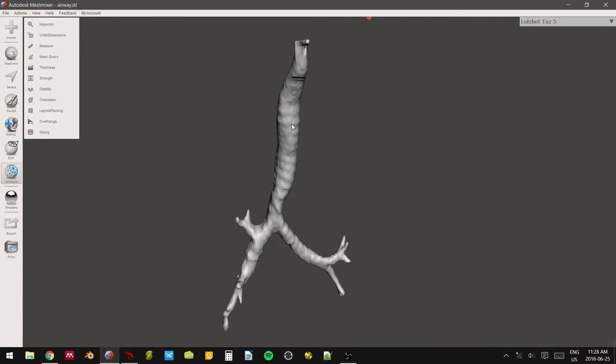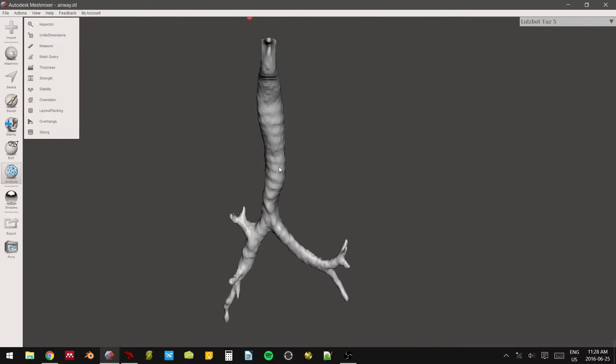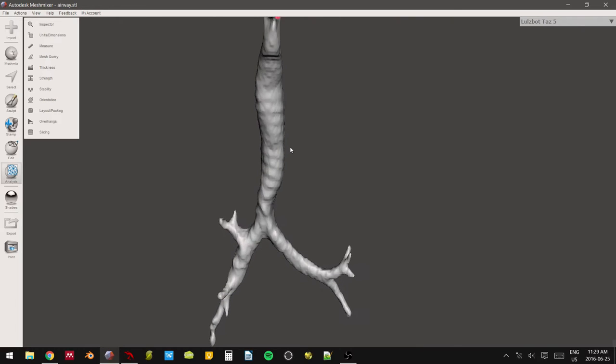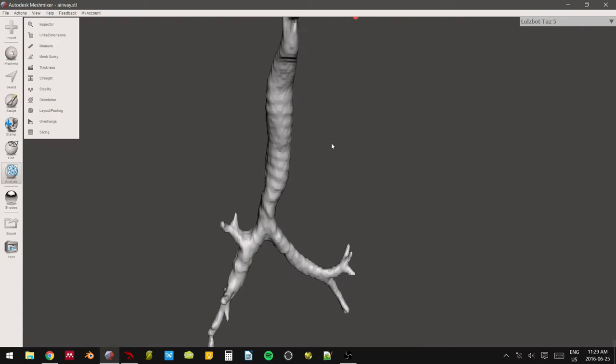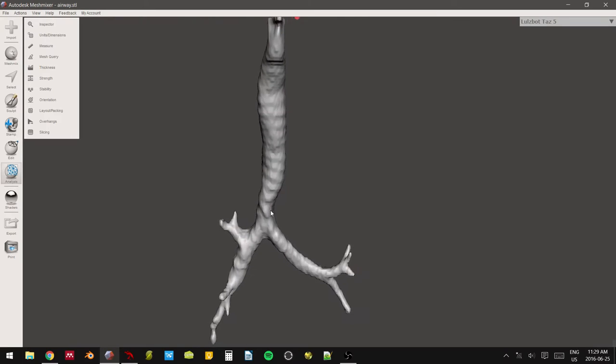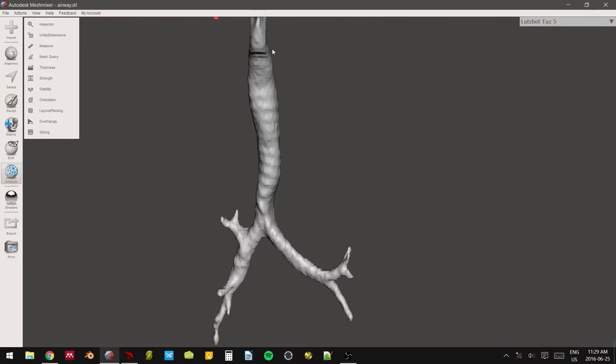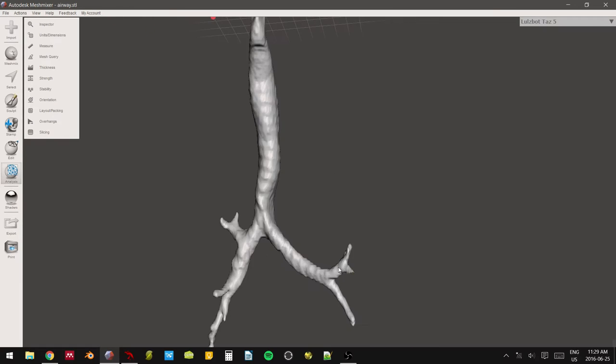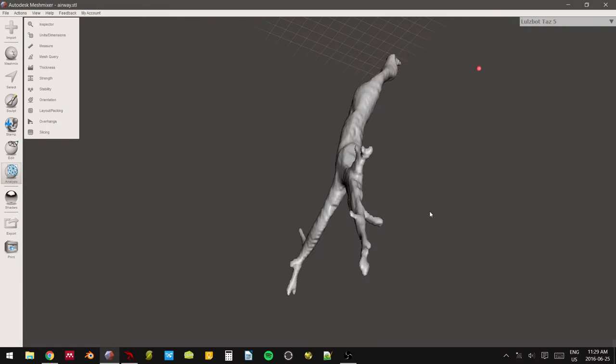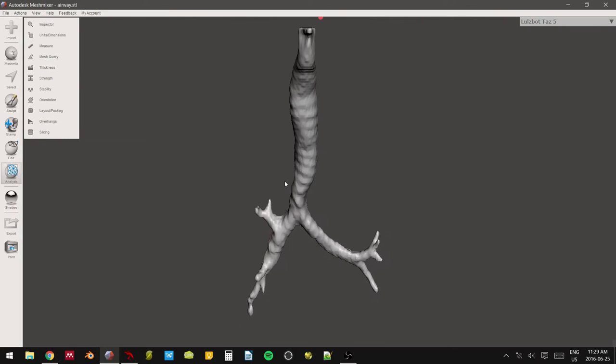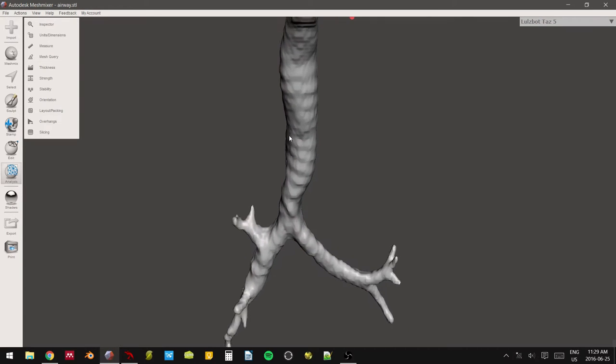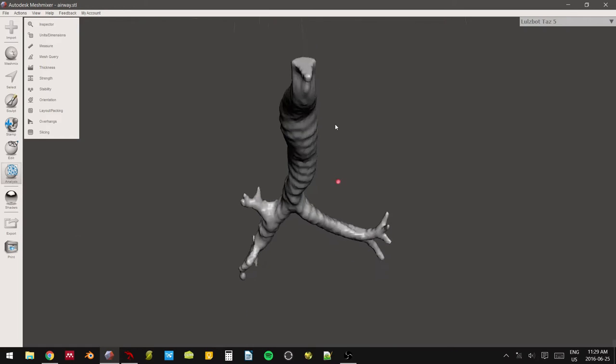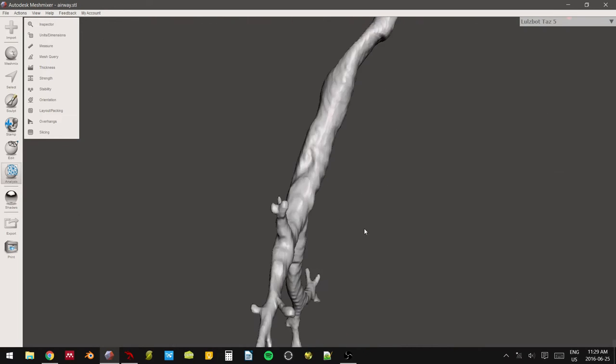Okay. From here, we have to ask the question, what exactly do we want to do with this model? So if you just wanted to use this as a gross anatomical teaching model, it would probably be okay to just print this model out. You can see all of the main points of anatomy that, for our purposes, that you want to show your residents or medical students. But in the lab, like I said before, we typically use this as a bronchoscopy simulator.